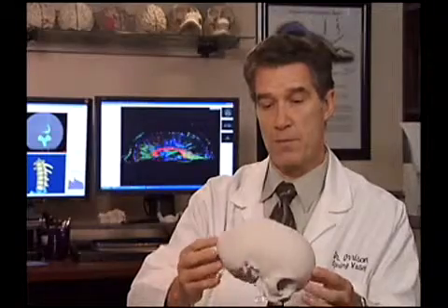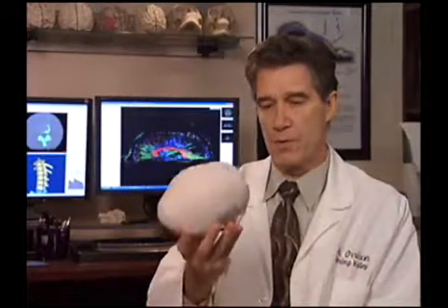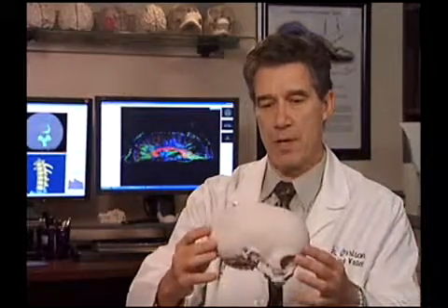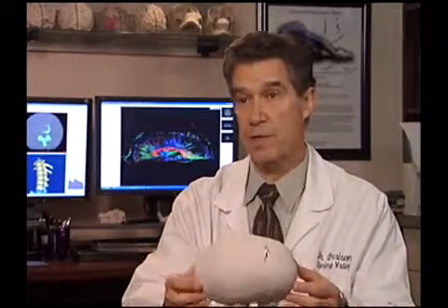The ability to literally hold this child's skull in my hand and have it be an exact duplicate is a tremendous advantage for making a diagnosis. It's a phenomenal advantage for a neurosurgeon who's planning surgery and also trying to explain what's wrong with the child.